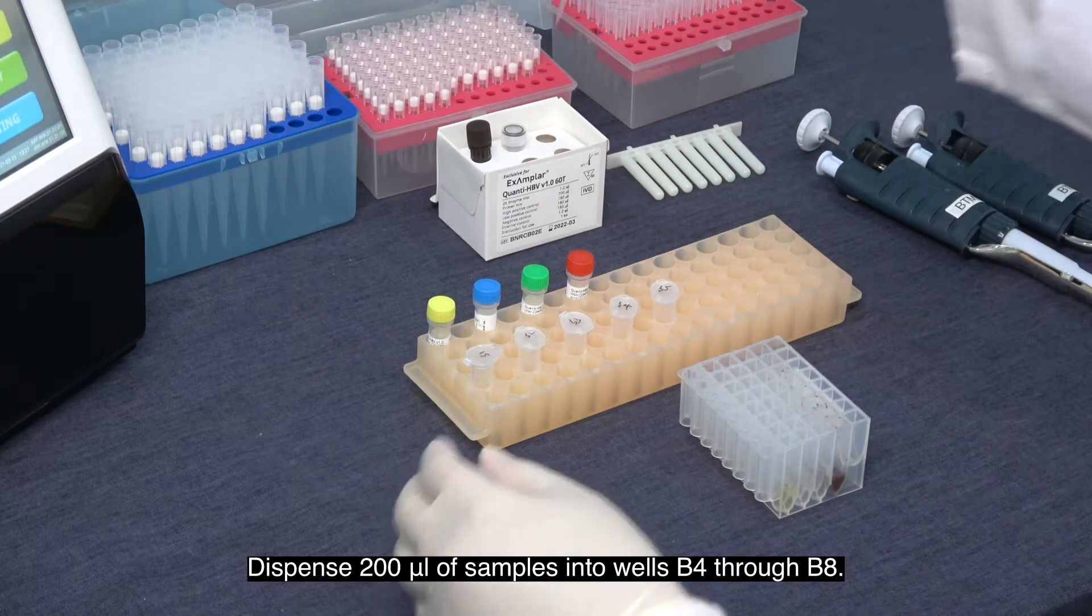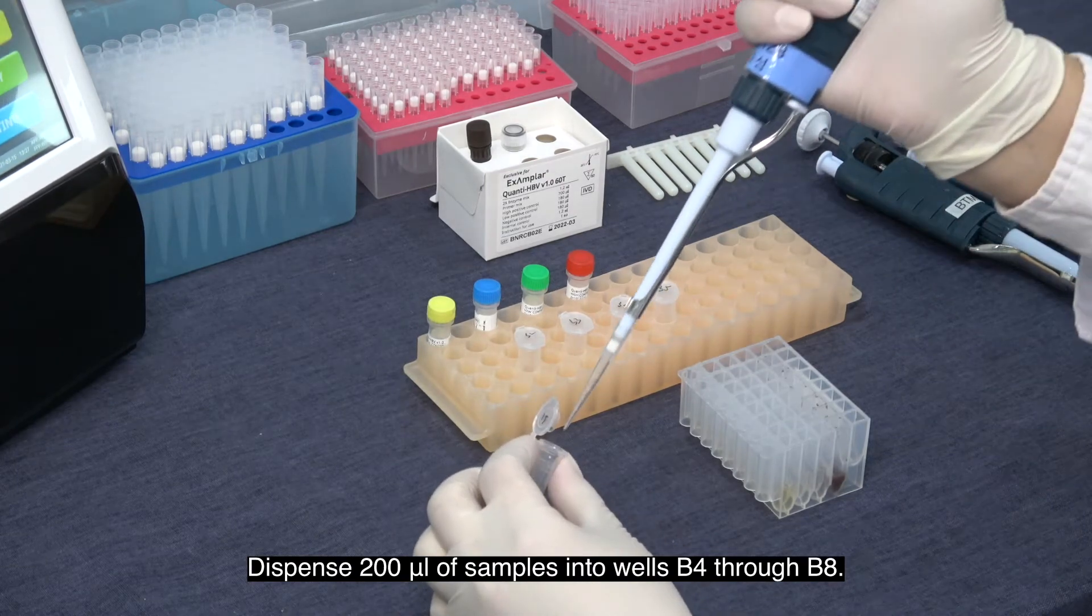Dispense 200 microliters of sample into wells B4 through B8.